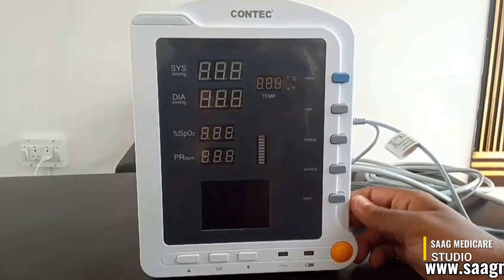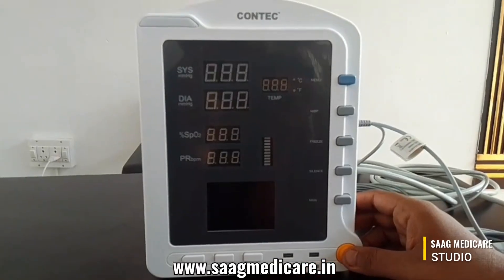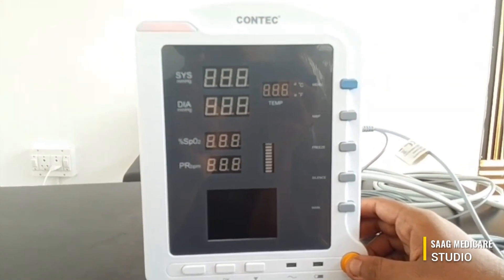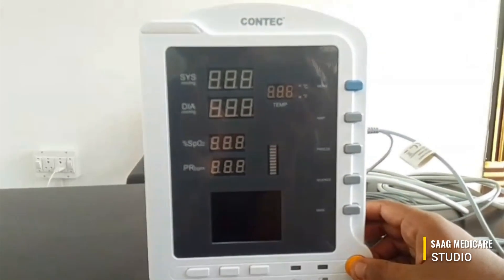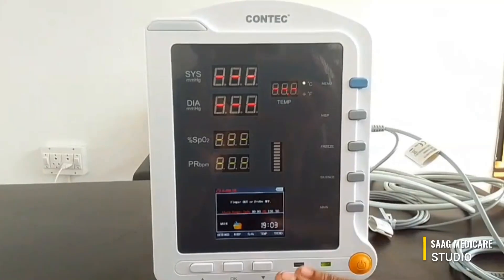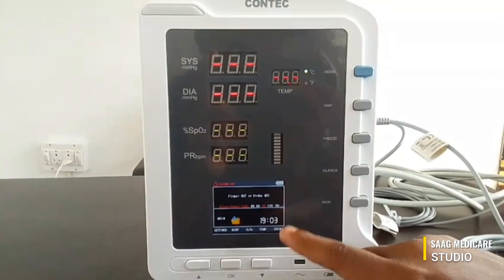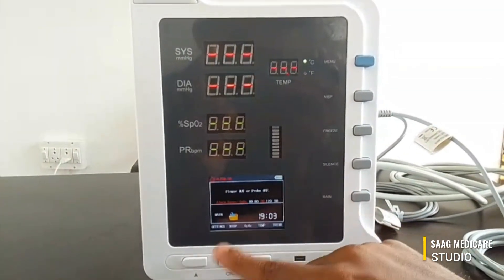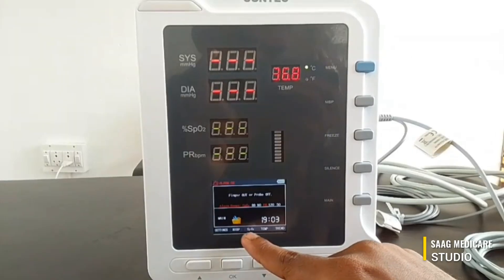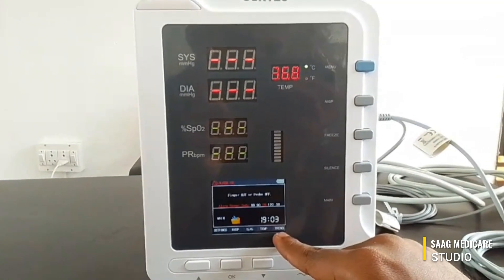Once the connections are made you can turn on the device. To power on the device just press the power button. Now you can see the device is powered on. In this you can find the battery indicator, settings, NIBP, SpO2, temperature, and trend track.